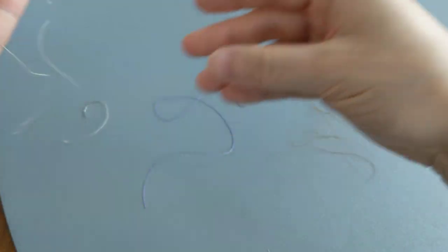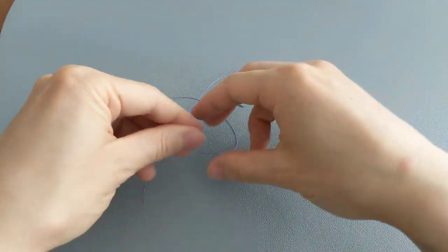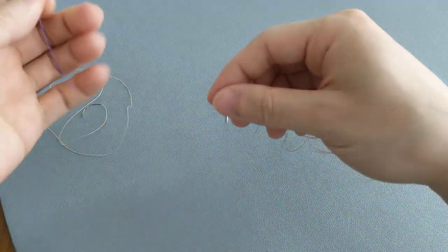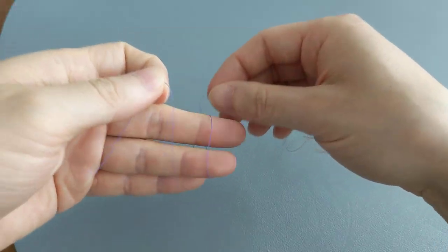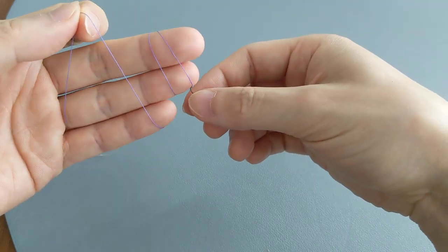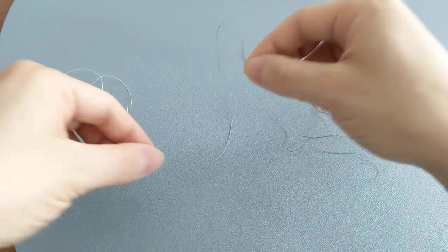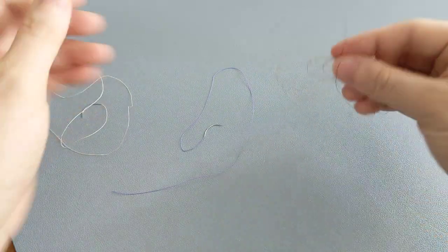The manufacturers will dye them just so you can kind of identify them and see them a little easier when you're putting them in. But overall, it mostly just looks like a piece of string.